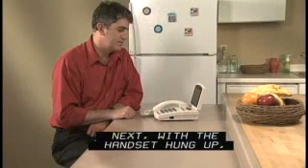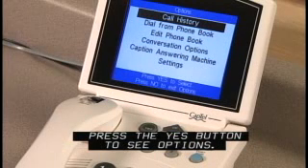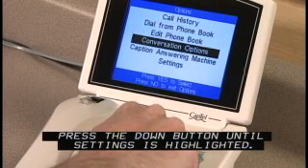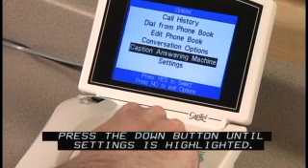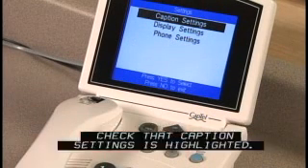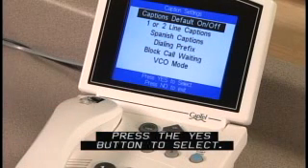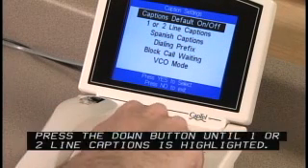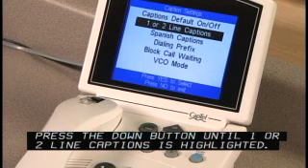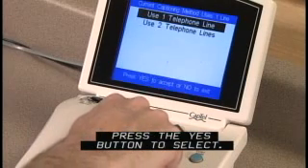Next, with the handset hung up, press the Yes button to see options. Press the Down button until Settings is highlighted. Press the Yes button to select. Check that Caption Setting is highlighted. Press the Yes button to select. Press the Down button until one or two line captions is highlighted. Press the Yes button to select.